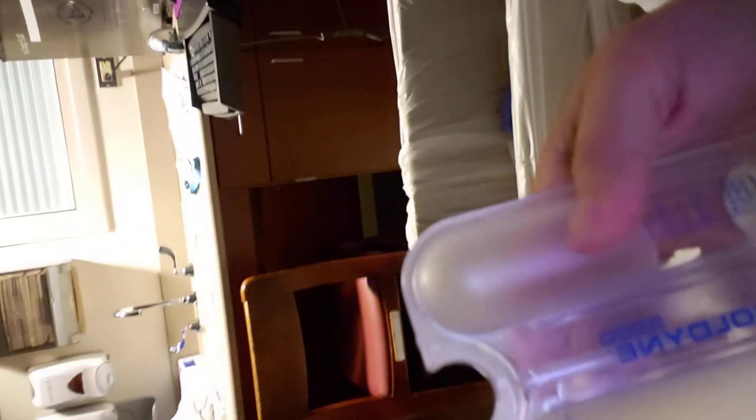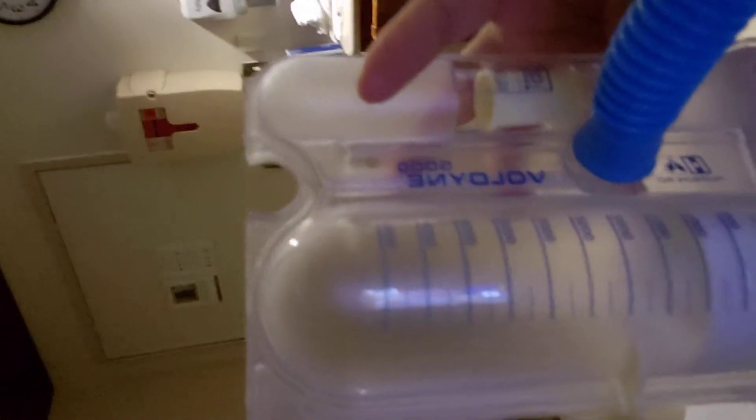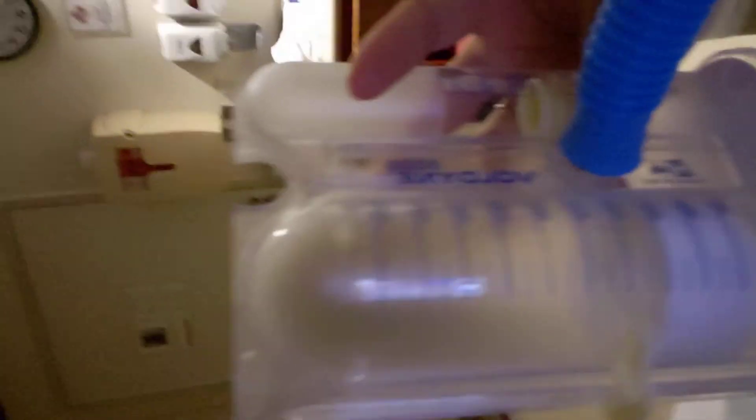You're trying not to just kick the ball all the way up. Let it hover and float around that best mark — the breath has to be slow and controlled. I'm alternating that ten times an hour.